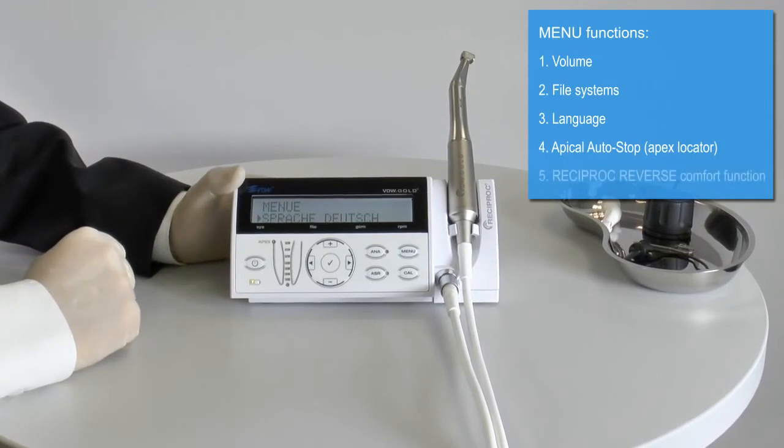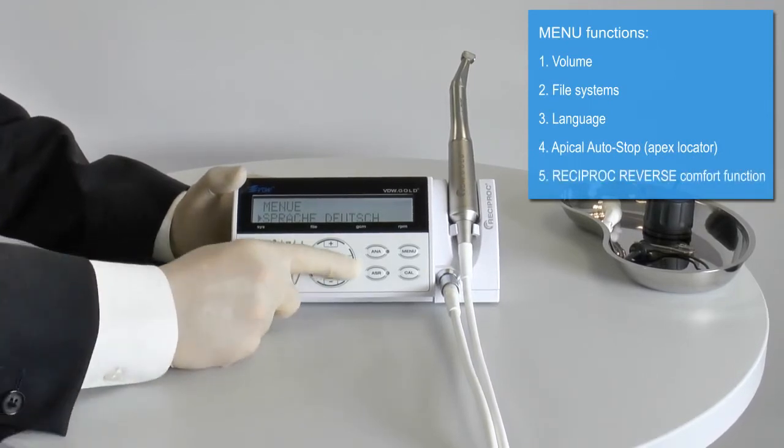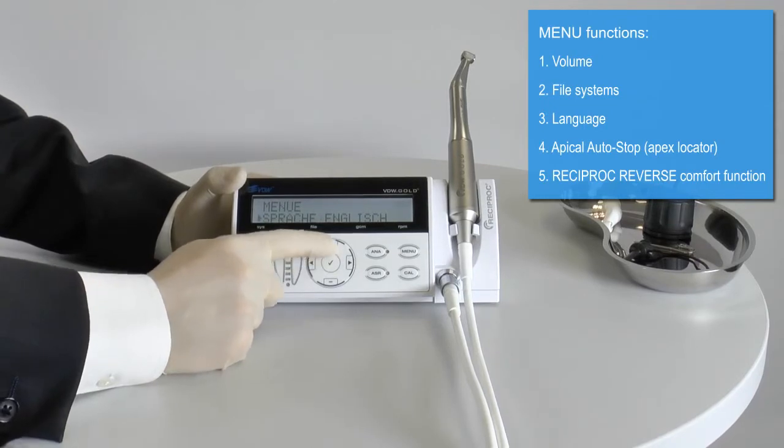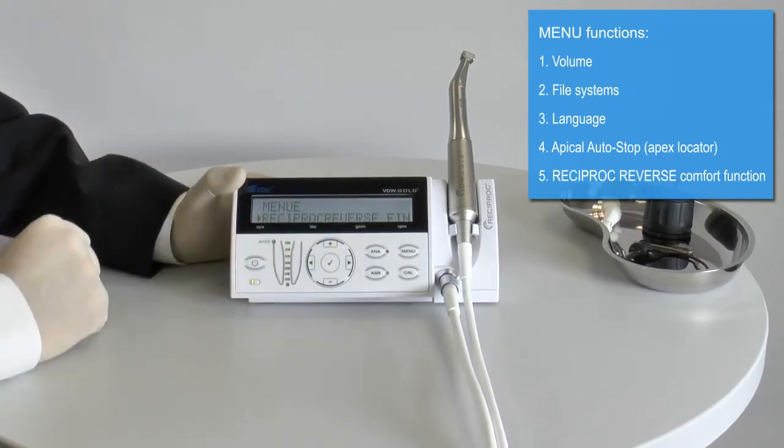You can select either German or English as display languages. The apical auto stop for the apex locator can be activated or deactivated.